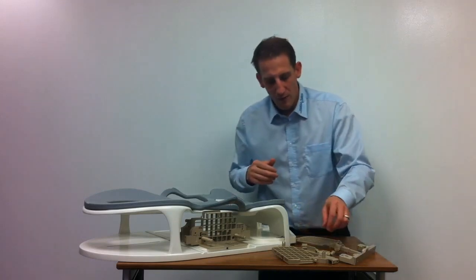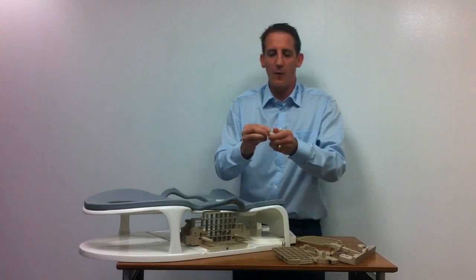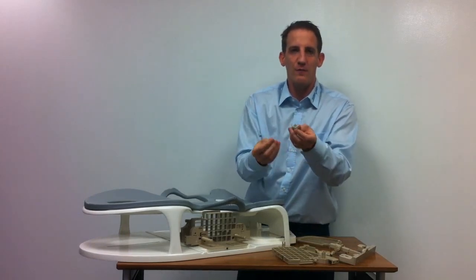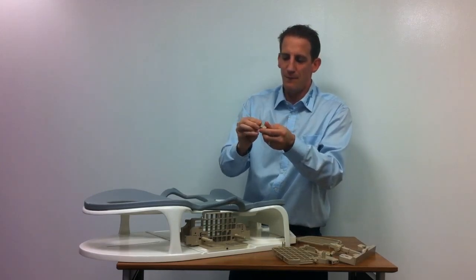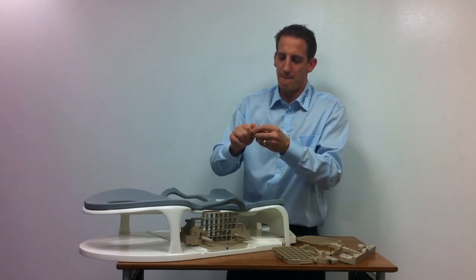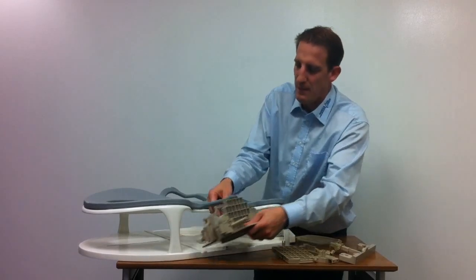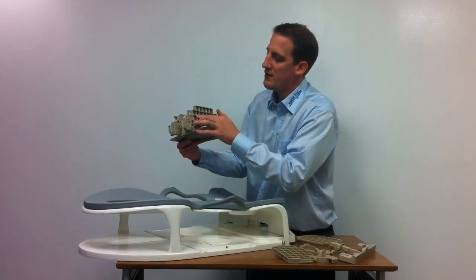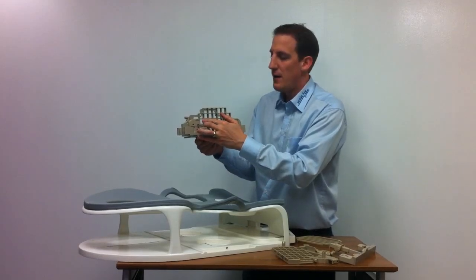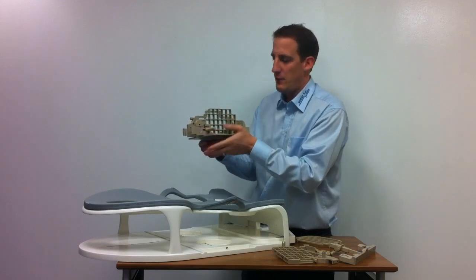So what we do next is use our oil marker. First thing we do is open the oil marker, take the cap off, and fill it up with oil. Then we plug it into the area where it says 'marker calibration system.' This will be our reference point for later — that will be the area we can identify on the MR image.